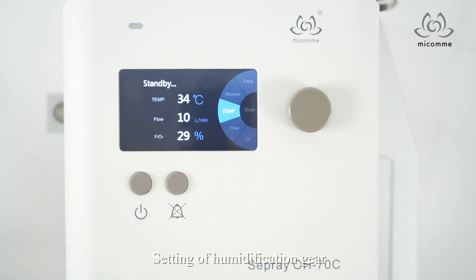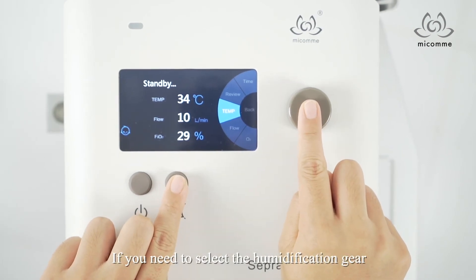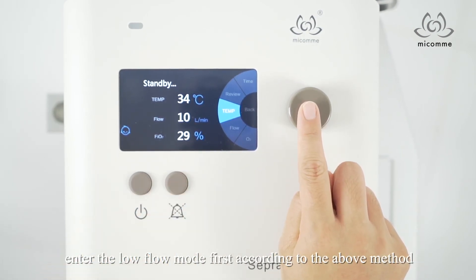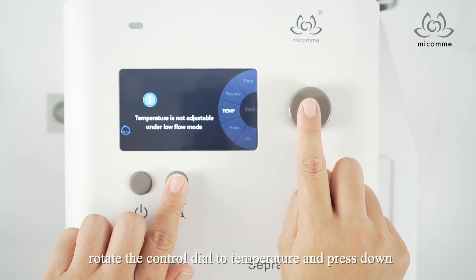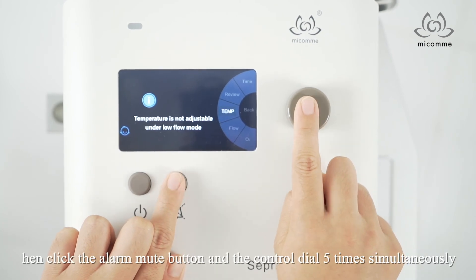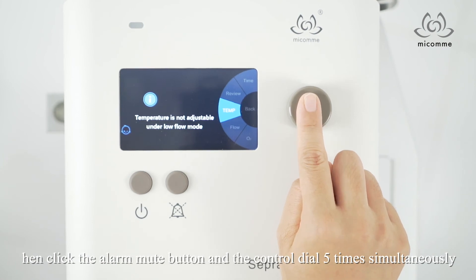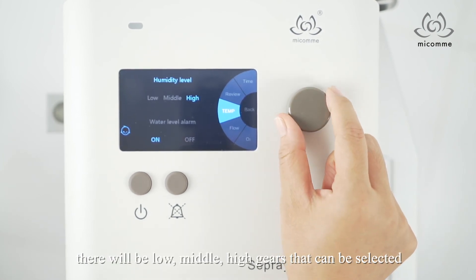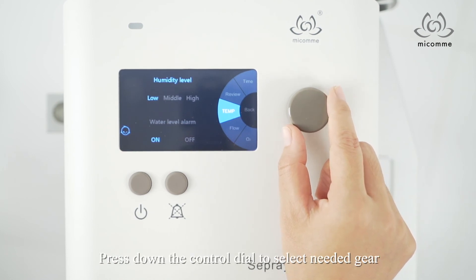Setting of humidification gear: If you need to select the humidification gear, enter the low flow mode first according to the above method. Rotate the knob to temperature and press down. Then click the alarm mute button and the knob 5 times simultaneously. There will be low, middle, and high gears that can be selected. Press down the knob to select the needed gear.